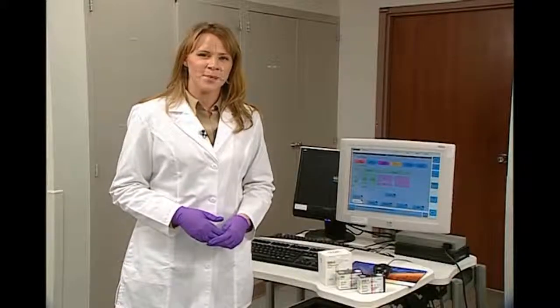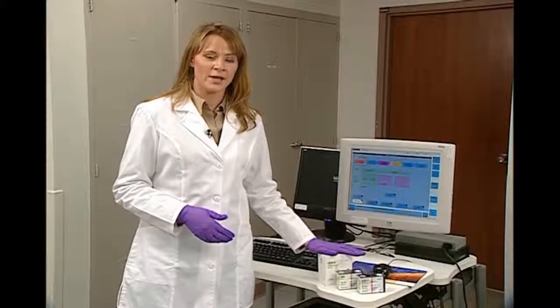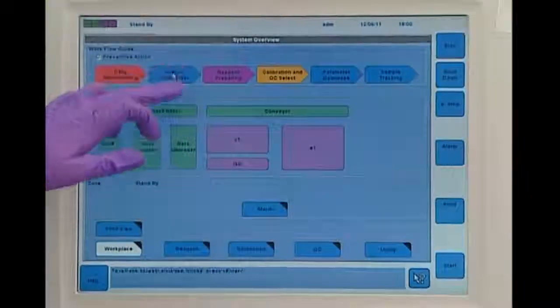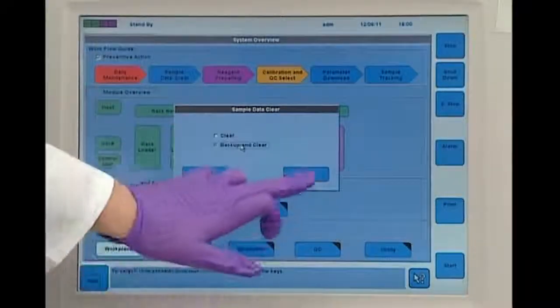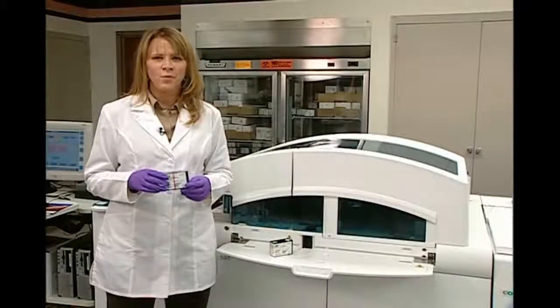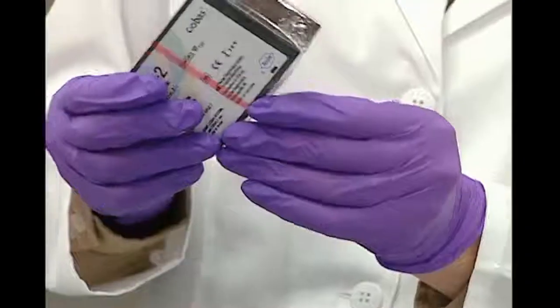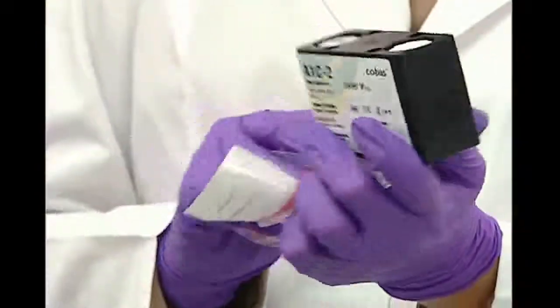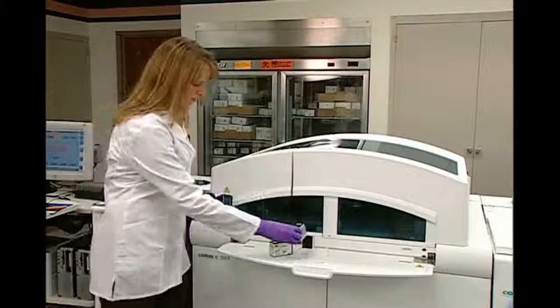We've just finished our hands-on maintenance and we're now ready to load our reagents. Before we do that, we're going to do a backup and clear of our patient and QC data. The reagent loading for the C501 module is as easy as taking off the cellophane and then loading it onto the system.